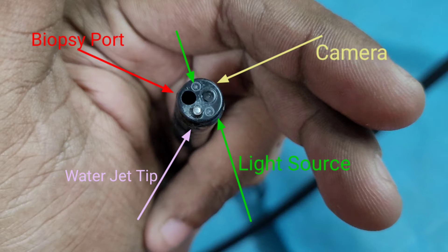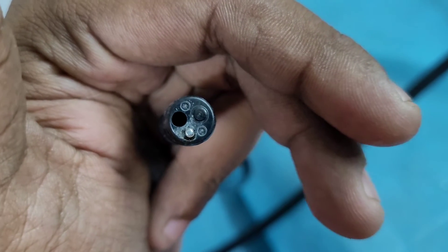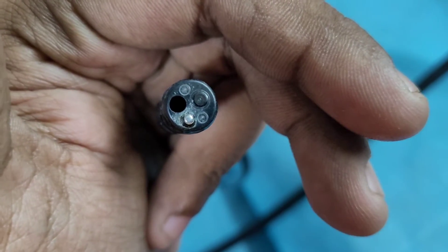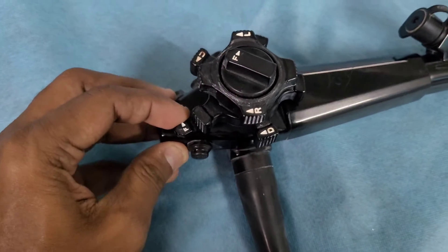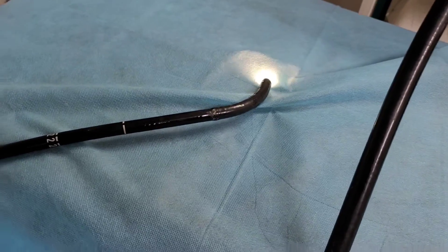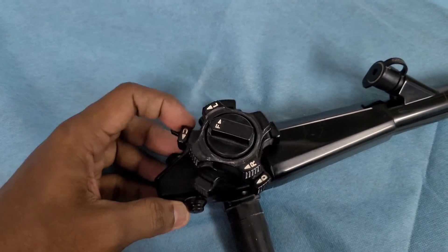At the insertion tube tip you can see the biopsy port, water jet tip, light source, and camera. This is the insertion tube section and we should handle it very carefully. There are two locks on this endoscope — one for up-and-down movement and one for left-and-right movement.